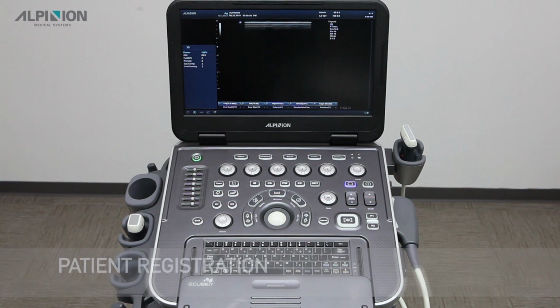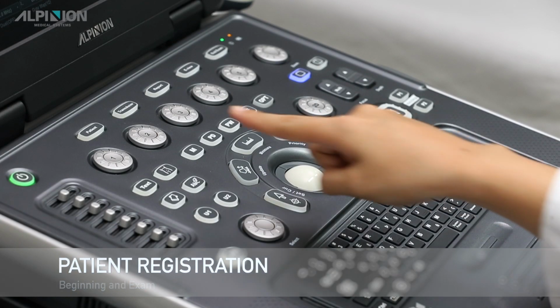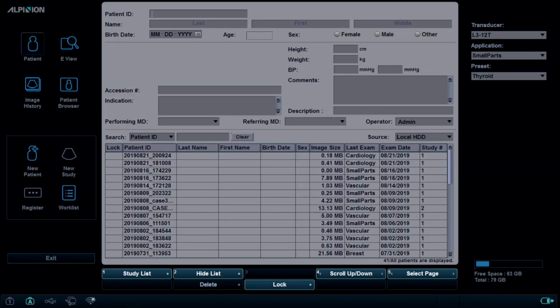Step 4. Beginning an exam. Patient registration. When pressing the Patient button on the upper left side of the Control Panel, the Patient Registration screen appears.